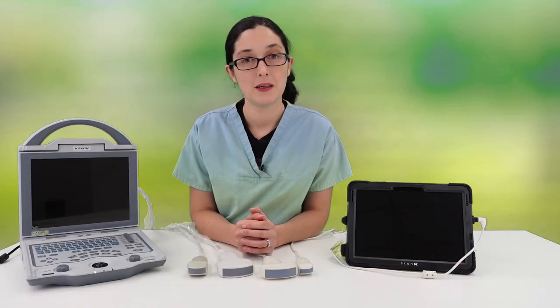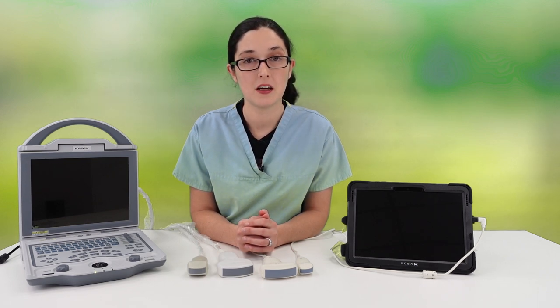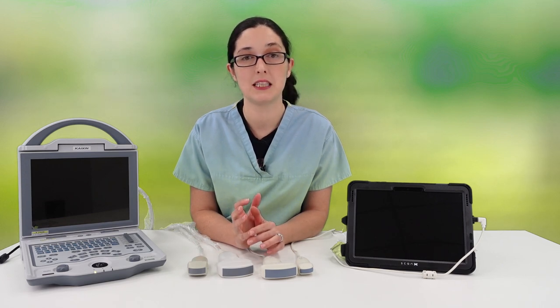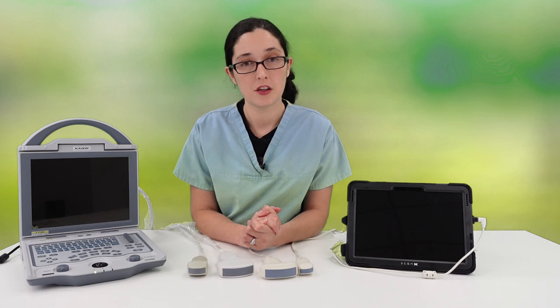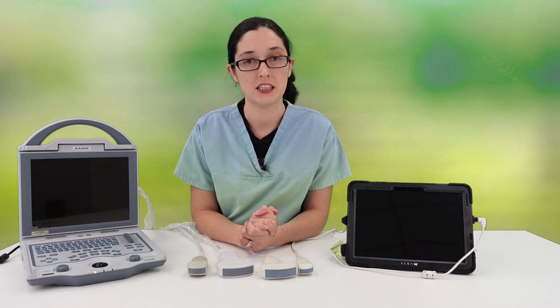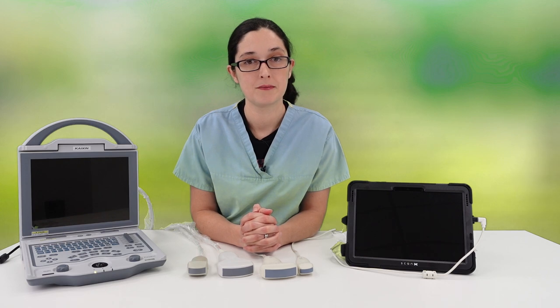I hope this video has been useful in helping you identify the best probe type for you. If you have a mixed herd, it is a more difficult decision. If, for example, you have mainly Nigerians and a few La Mancha goats, none of whom are particularly large, then I would say go with a microconvex — it's going to give you better quality images and be a lot more manoeuvrable in your smaller goats. If, however, you have primarily larger breed goats, go for a convex probe, because that way you've played it safe and you'll definitely get sufficient penetration, even if you have a foetus that's very deep inside one of your does. Good luck!